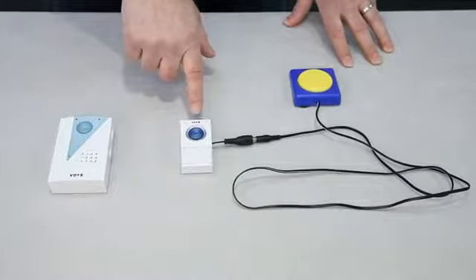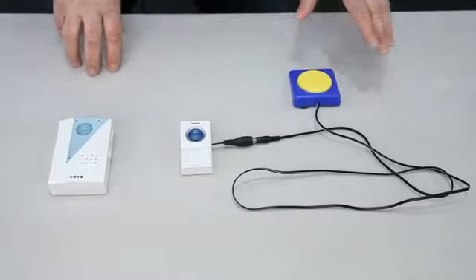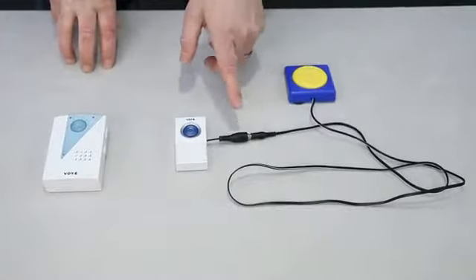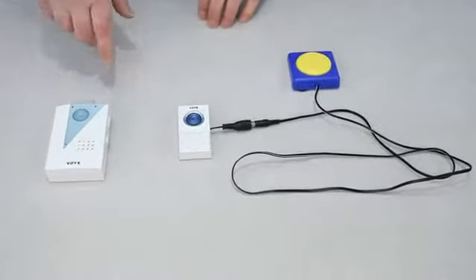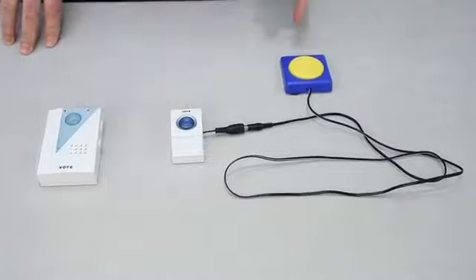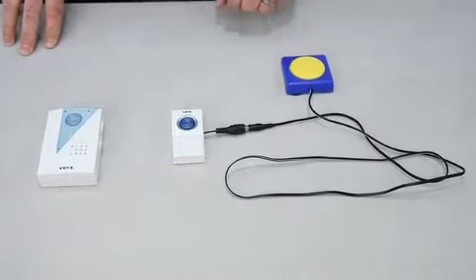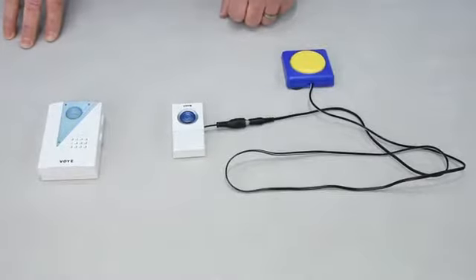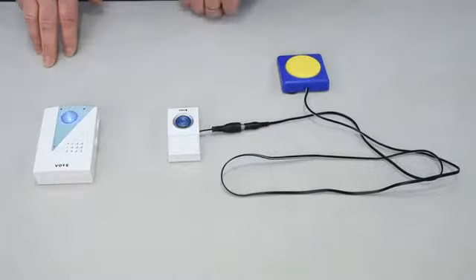There's the transmitter and then your receiver. You can press this button here, or your connected capability switch, to send a signal wirelessly to the receiver. I'll just demonstrate. And you can also use this button as well.